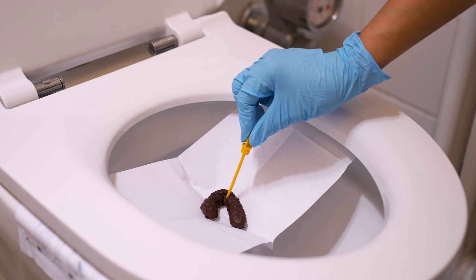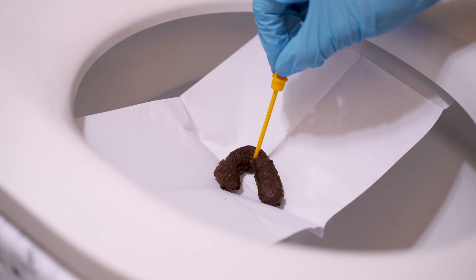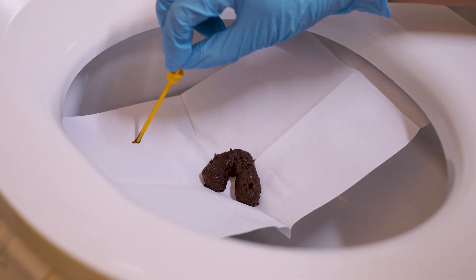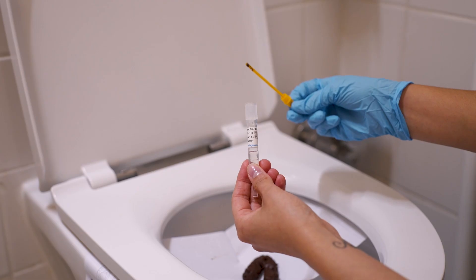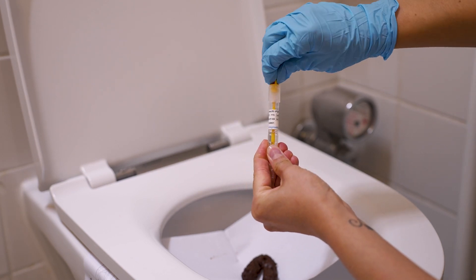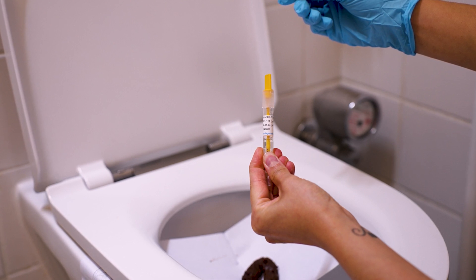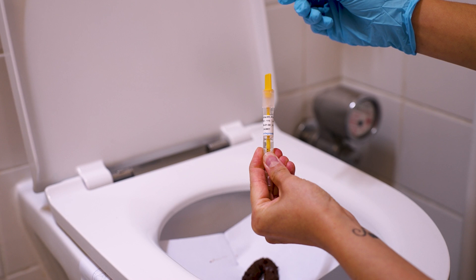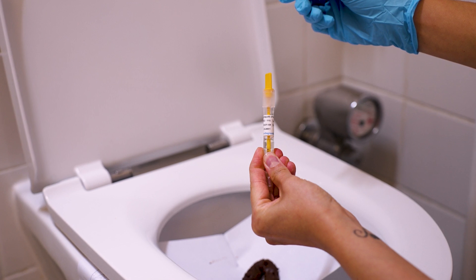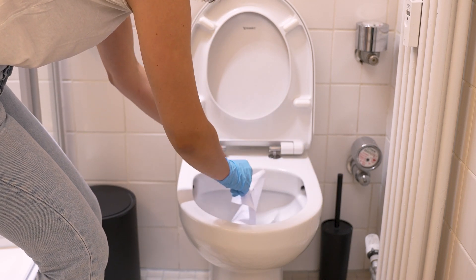Prick the stool sample with the yellow sample collection stick in at least three different places. All grooves of the sample collection stick must be completely filled with stool. Strip the excess stool from the blunt end of the sample collection stick. Then return the sample collection stick to the sample collection tube and close it carefully with a slight twist. Only return the sample collection stick once and do not pull it out again, or else a correct sample volume will no longer be guaranteed. The paper stool collector can now be flushed with the rest of the stool.